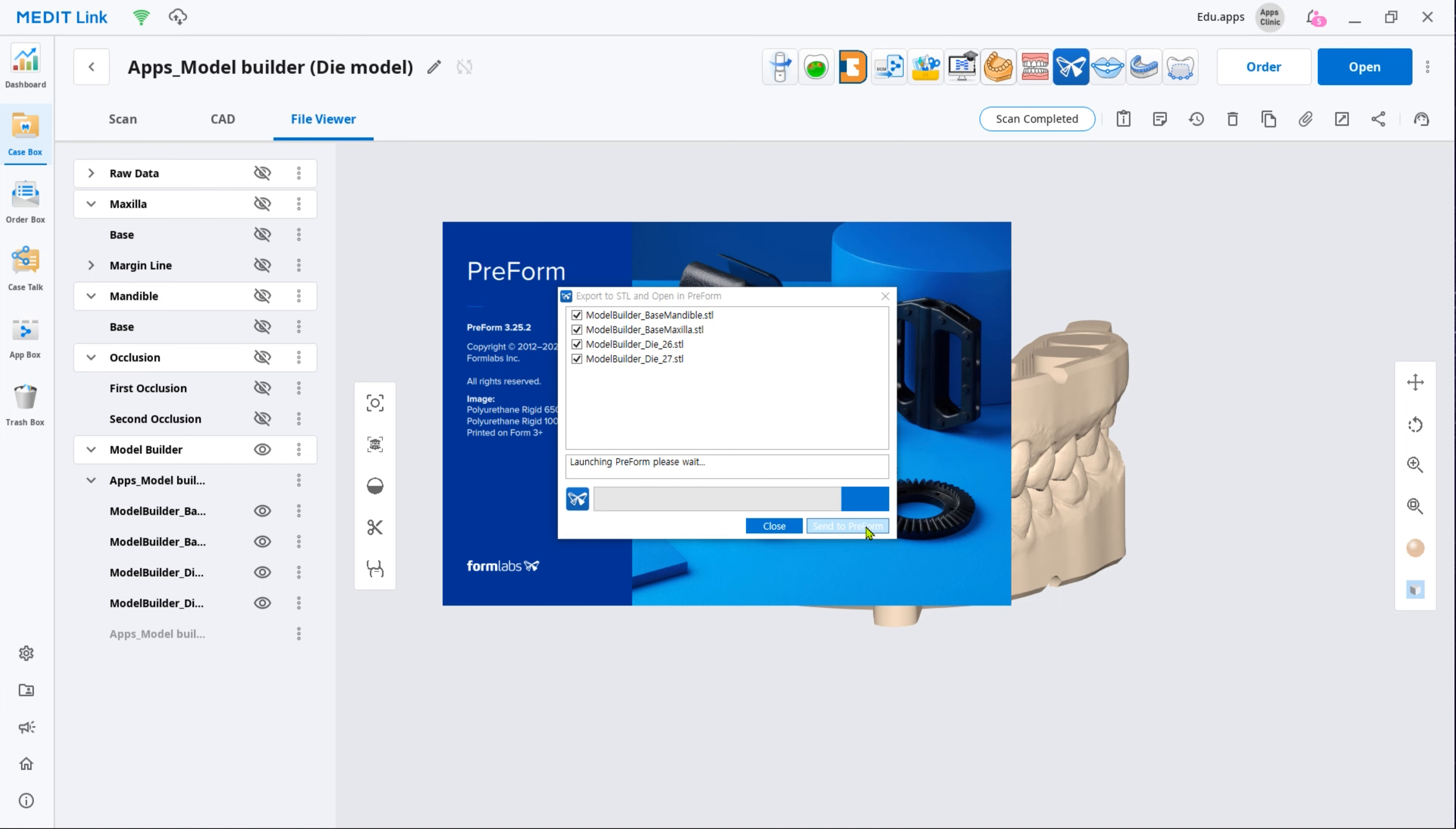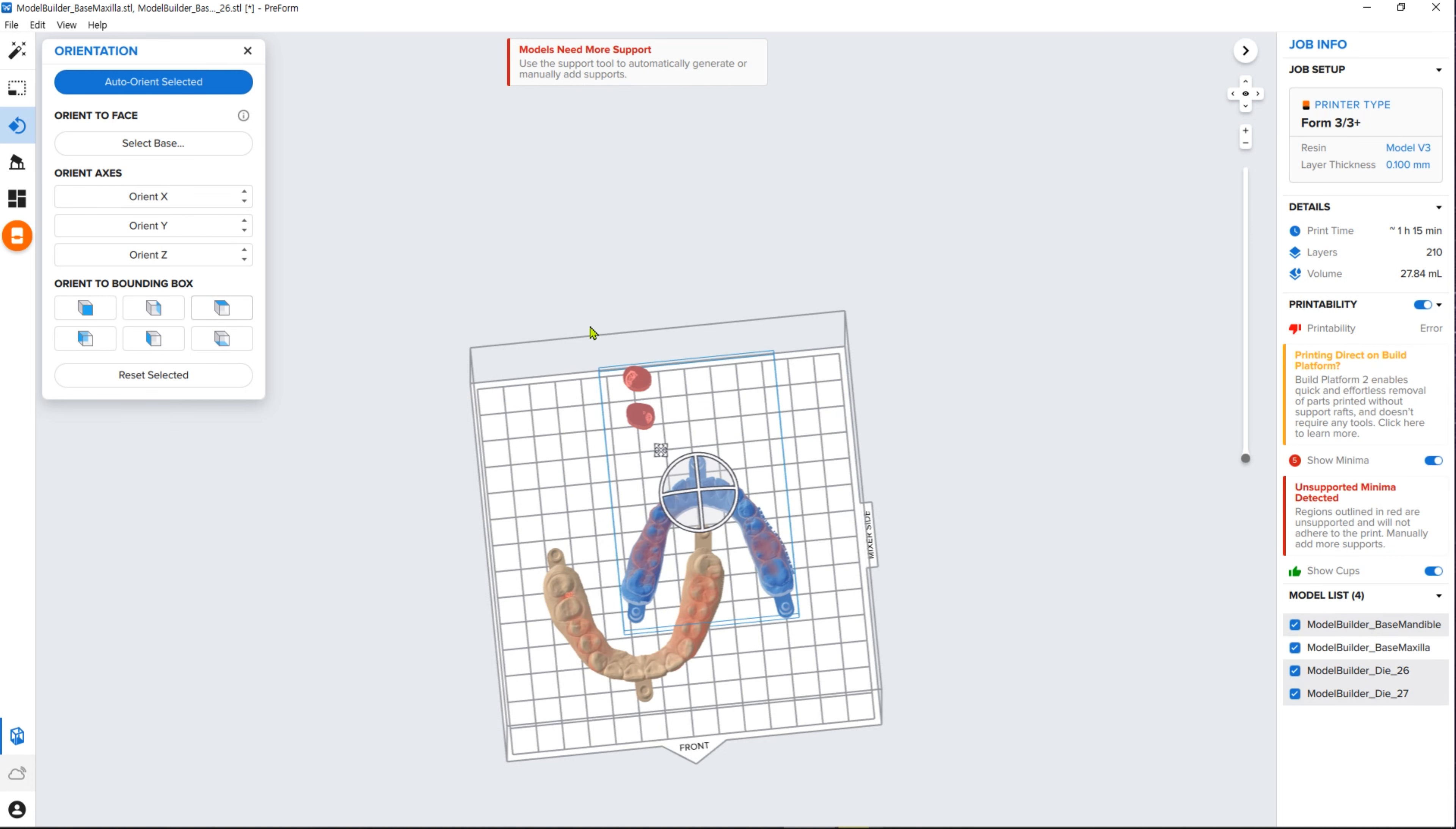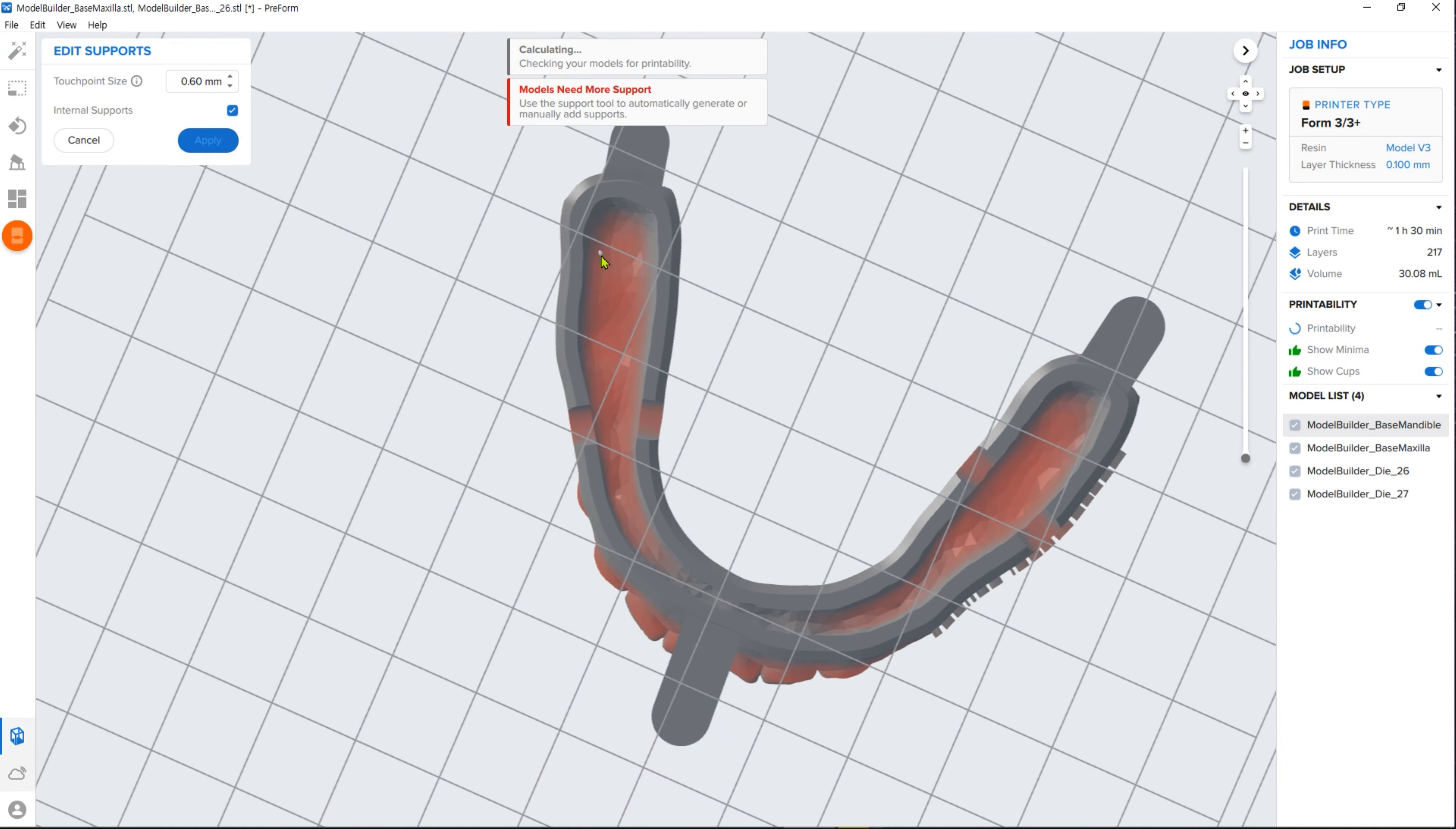Select the file you have just created and export it to prepare the model for 3D printing. When printing a hollow 3D model, it is recommended to add internal support in hollow parts to avoid unsupported elements floating in the tank.